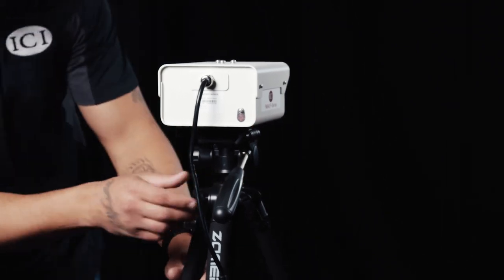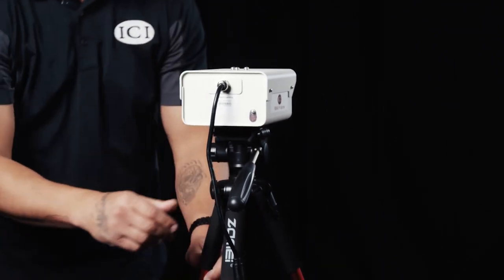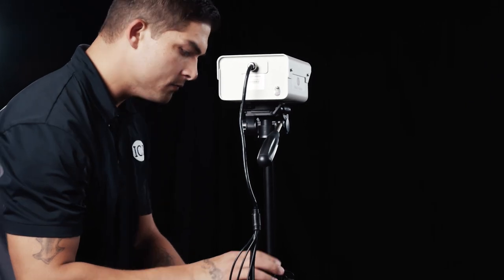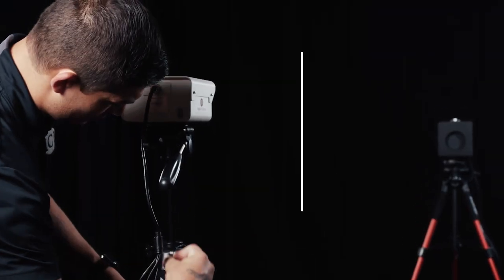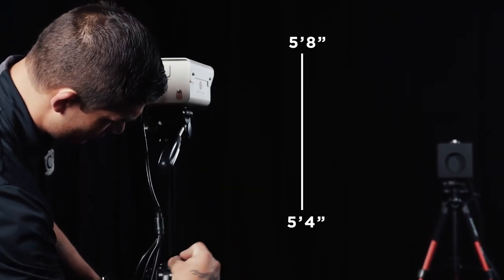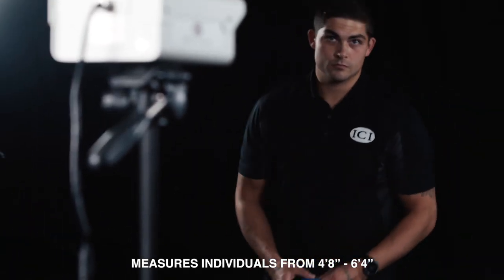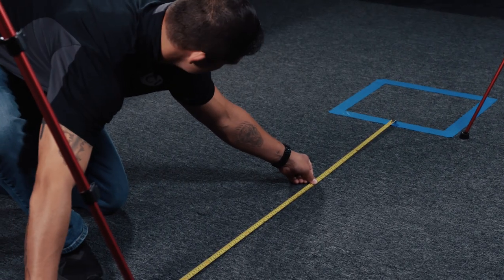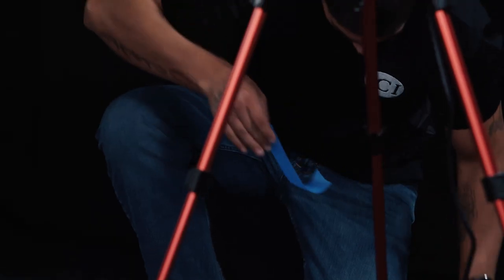The placement of the camera should be perpendicular in both the horizontal and vertical axis to the individual being screened. Set the height of the camera from five feet four inches to five feet eight inches — this will allow imaging of individuals from four feet eight inches to six feet four inches. Measure the distance needed for the temperature screening system you have purchased.